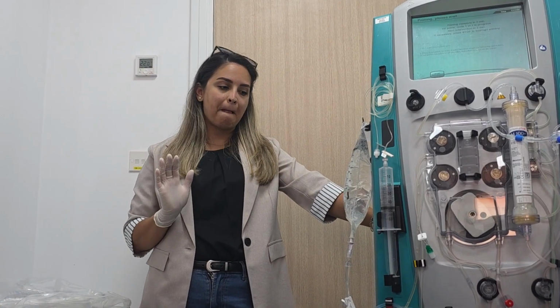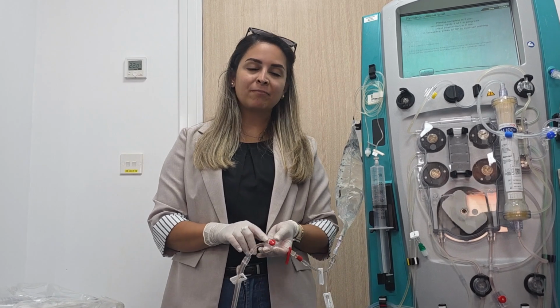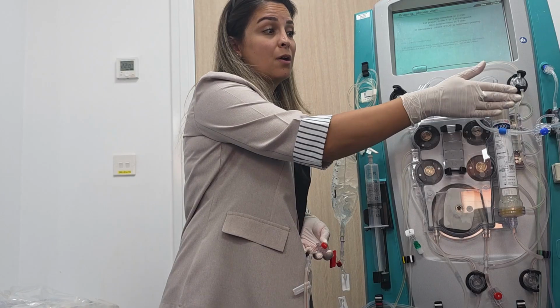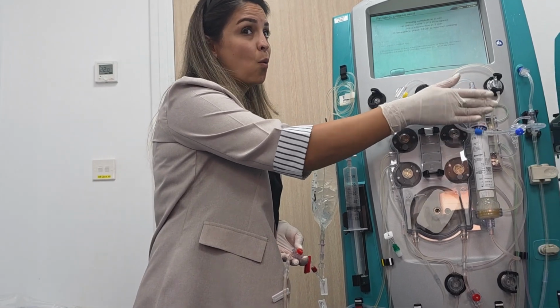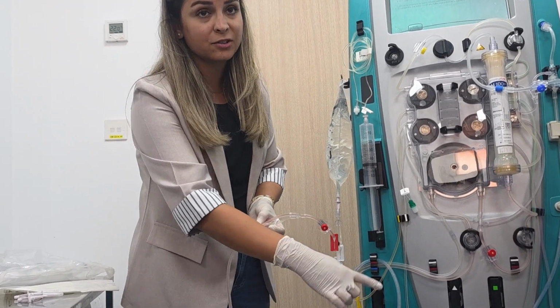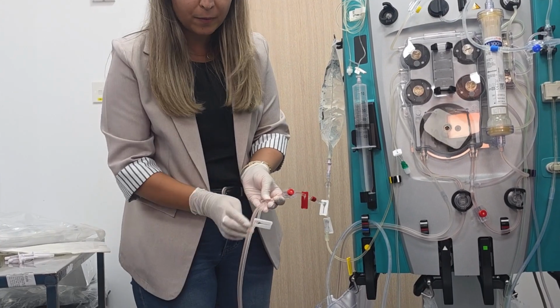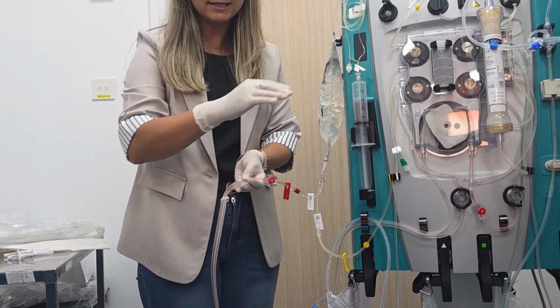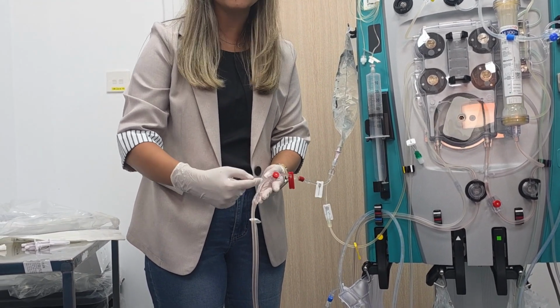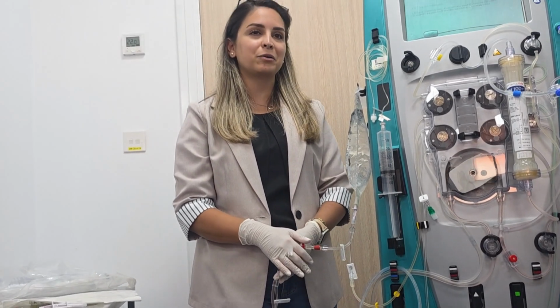What about this port? Great, thank you for the question. To be honest, we didn't use it before. We don't think it will be accurate. Why? Look, see the white line, see the citrate. The citrate infusion will be here, then come with the blood to the filter. So if the flow rate is higher, maybe some citrate will come to it. So when you take a blood sample, the ionized calcium will not be accurate.